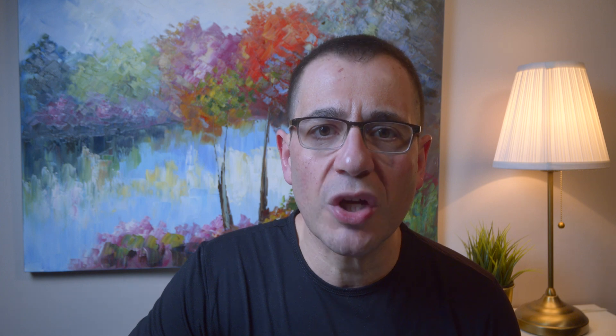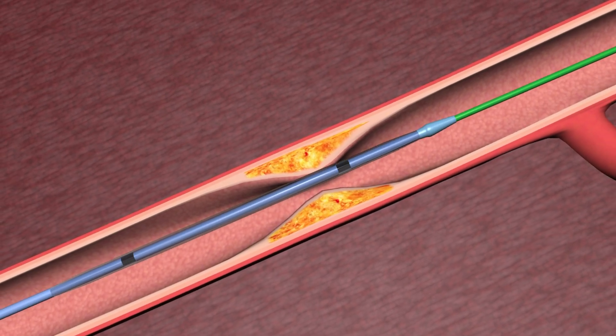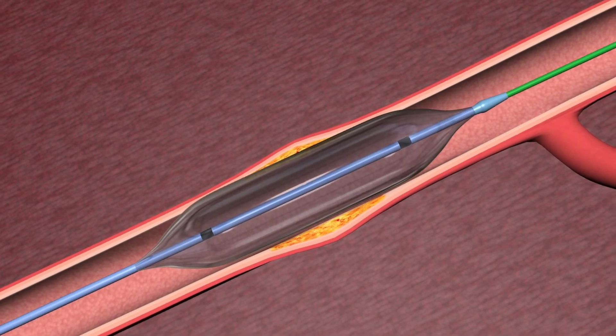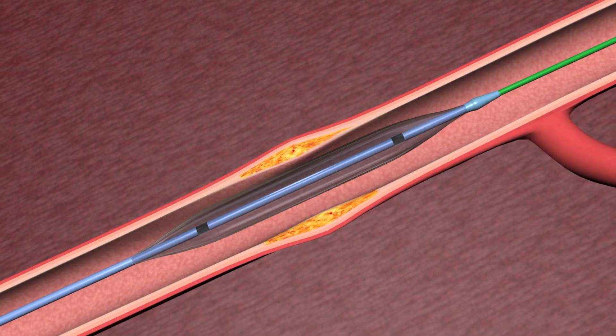We place typically a balloon first to stretch open the artery. And you might hear your doctor say we inflated the balloon — well, how do we inflate it?